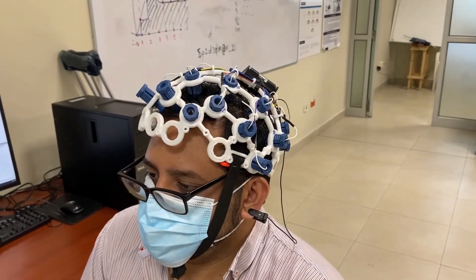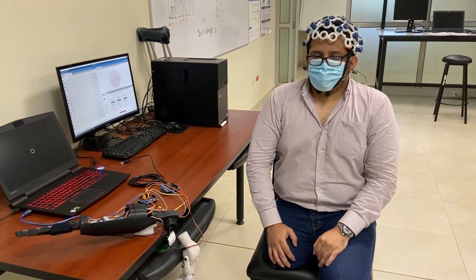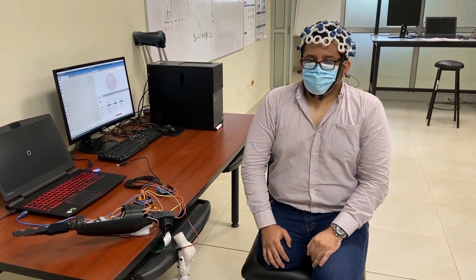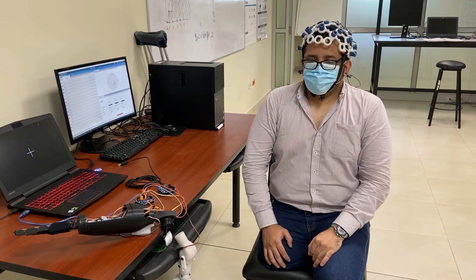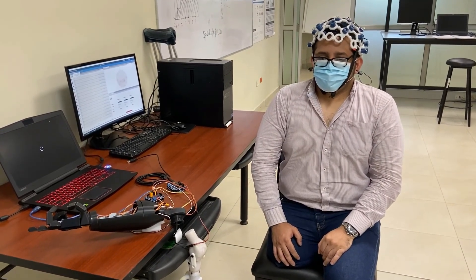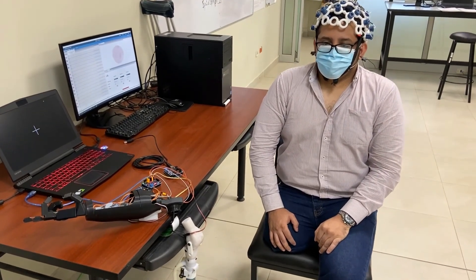Then again — now we will do the prosthetic arm control test. The subject imagines closing the hand, and then opens the hand.